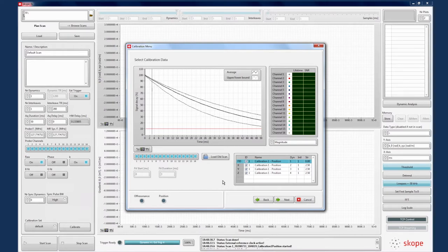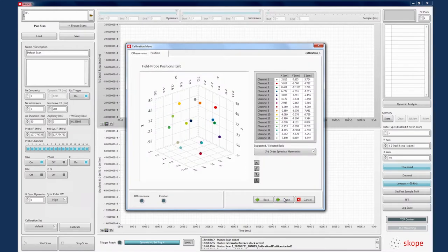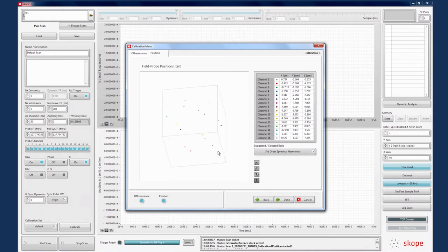Clicking to the next screen, we see a point cloud of the positions of the probe as measured by the calibration scan. Here we can verify that they are positioned about isocenter and if not, we can reposition the camera and start again.